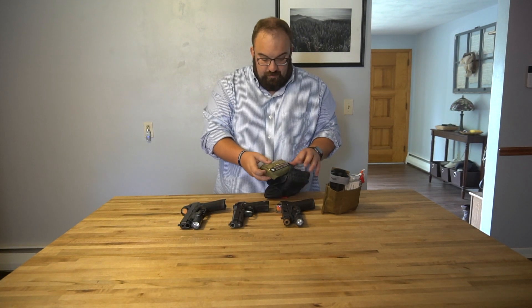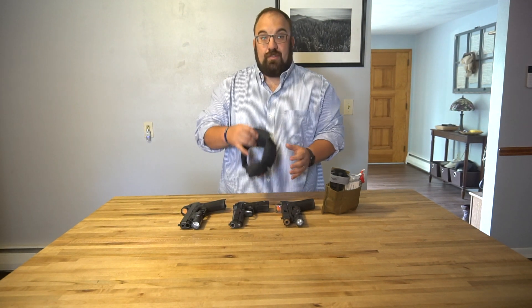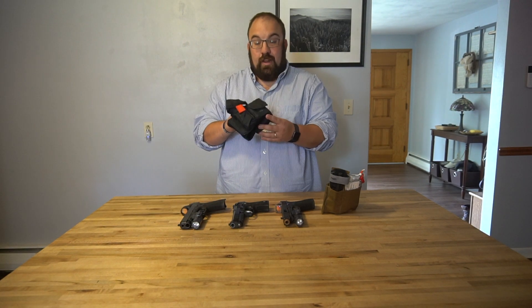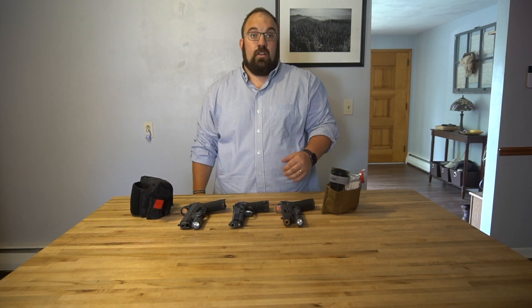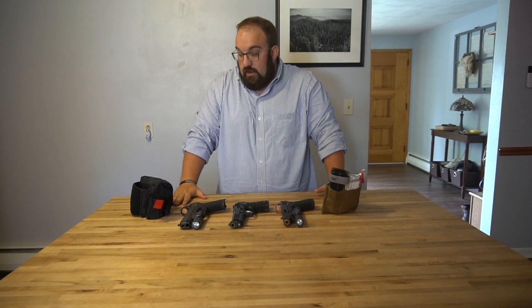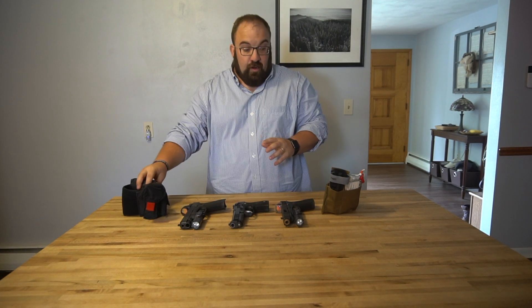This kit has been what I have been wearing on my person for a long time. And no disrespect to the folks at NAR — they sell great medical stuff, good tourniquets, good kits. That being said, I was finding this to be a little inadequate given what has been happening recently, so I decided to upgrade. Where I go to upgrade? A very natural place: darkangelmedical.com, a guy by the name of Kerry Davis.